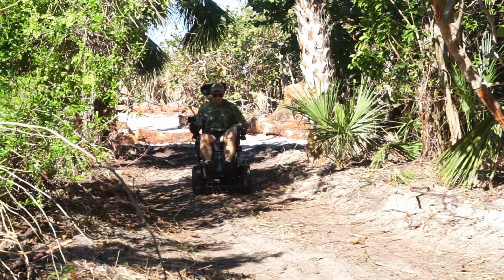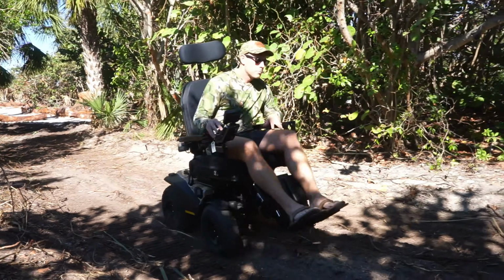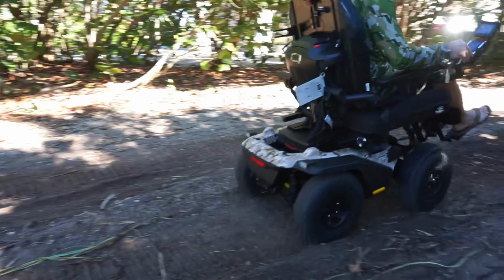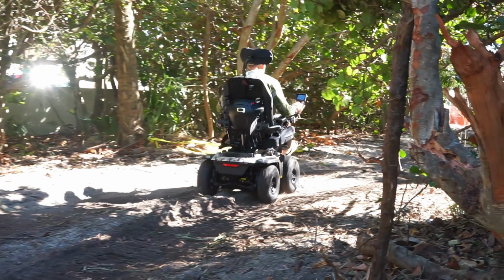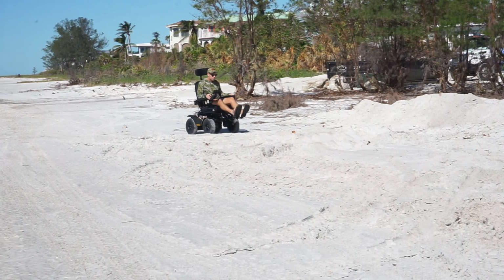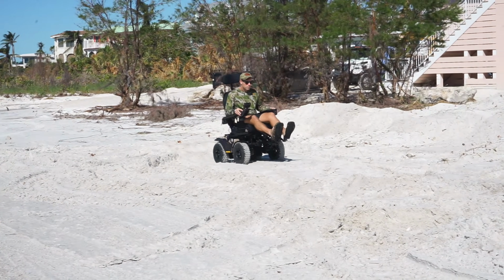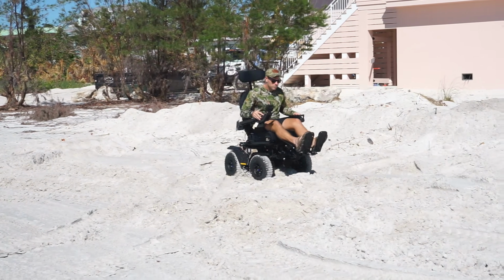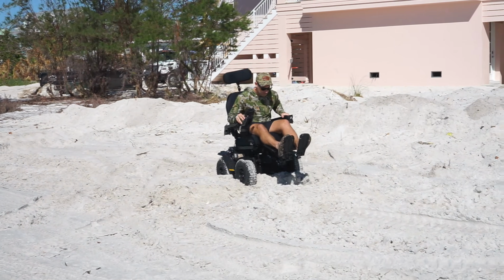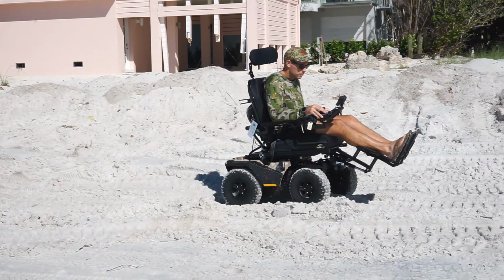So if you had a really wide open floor plan, yes, you could take this inside, but this type of unit is made more for people that have a chair inside or are able to get around with a walker or a cane or other type of device, but really want something that's truly all-terrain out there on the market. I mean, we've taken this to the softest of sand on the Florida beaches that we have here, and I can tell you there's nothing else currently on the market that drives with the power and the maneuverability of the Quantum Outback.